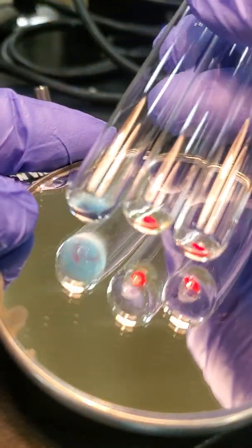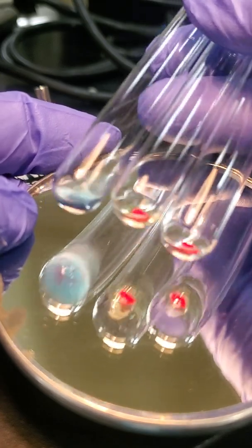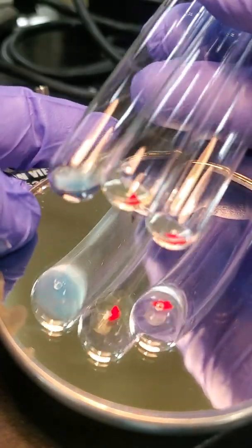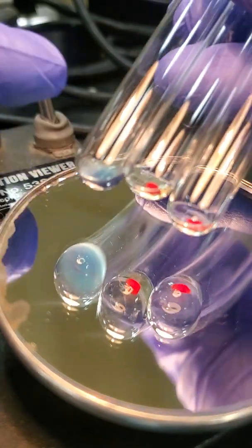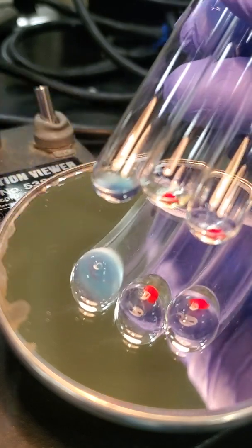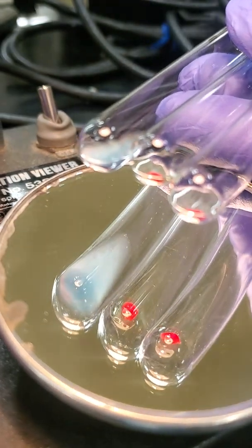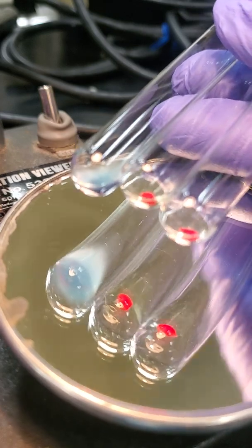Our antisera bound to our patient's red cells, confirming that the patient has the D antigen. So our negative reaction is showing us that our patient lacks that antigen, that there's nothing for our antisera to bind to. Okay? So just based on our forward reactions, our patient is B positive.